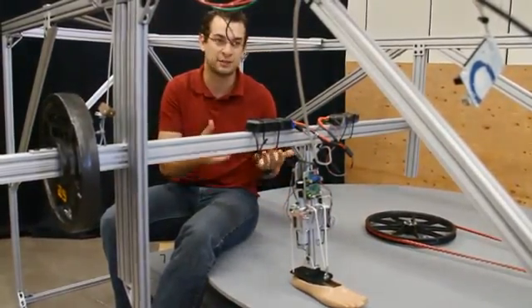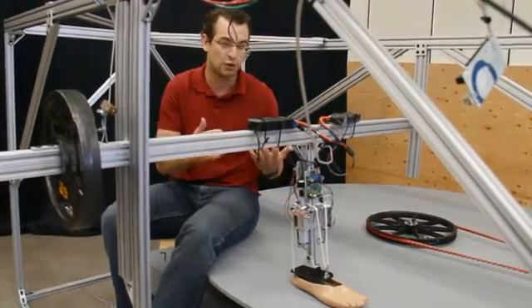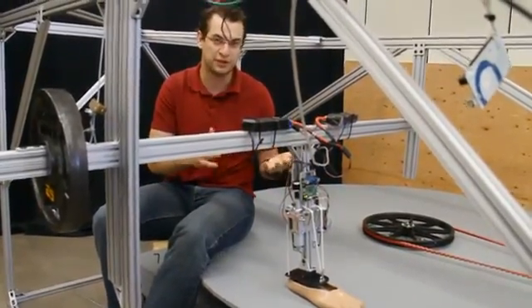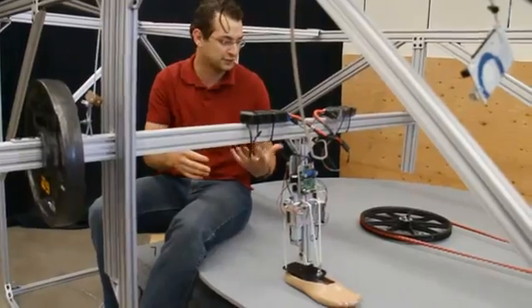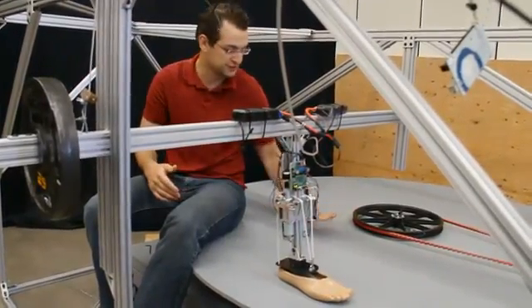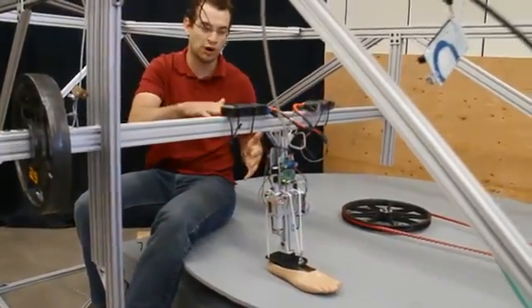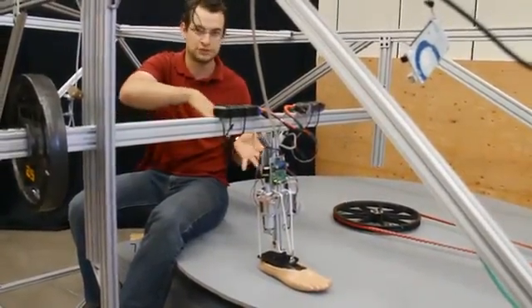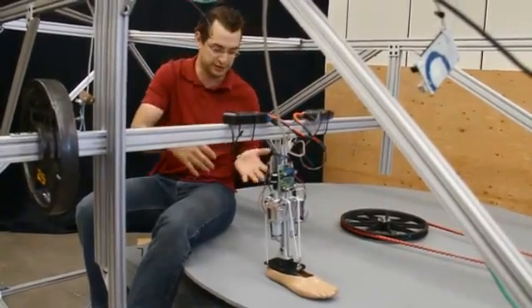To test the turning capabilities of our prosthesis, we have to test it. We could use a regular treadmill, but that goes always in a straight line. So to test the turning motion, we built this circular treadmill where, to walk on top, the foot has to turn, similar to what a person would turn in a regular gait.